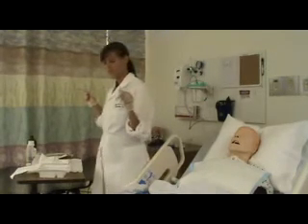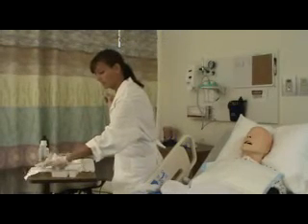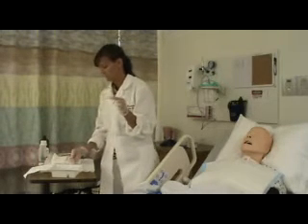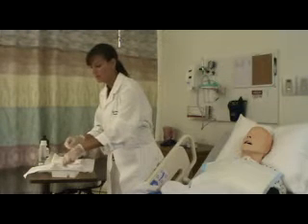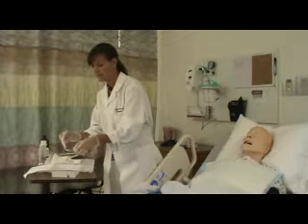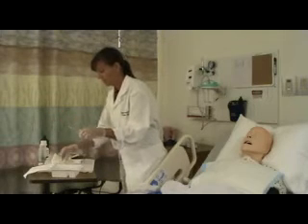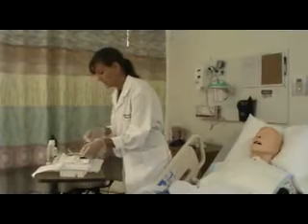Now we pick up the plastic face plate. Because this is not sterile here — the part that remains outside of their throat is not sterile, so you're picking that up with your clean hand. And then I'm going to swish it around in the half-strength peroxide bath, go in with my brush, give it a nice clean up, throw that away, and go again to clean off anything on here.